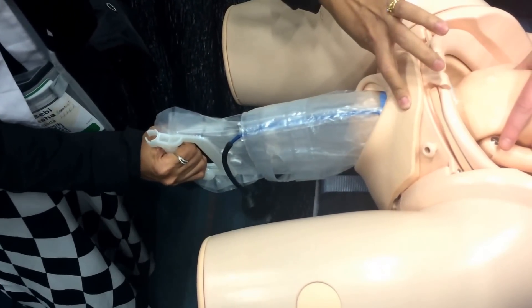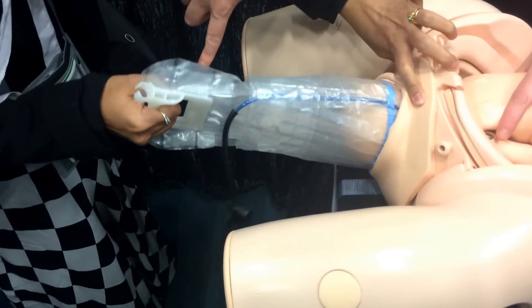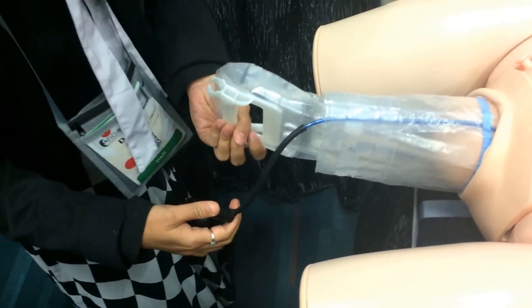Use the J curve — it's just the same. Now stop when you see this blue line. Hit the button to let out the air. Some of them have a screw, some have a button.